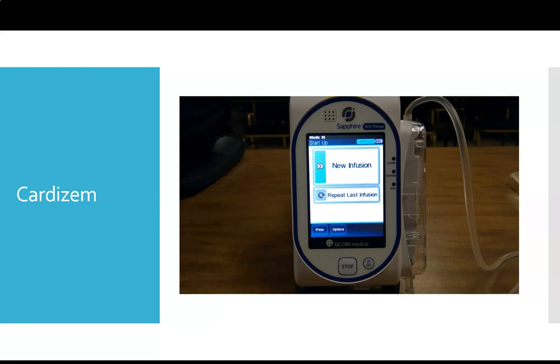Alright, the next medication we're going to look at on the pump is Cardizem. And Cardizem is the most complex med to run through the pump, but it actually is very user-friendly once you have it set up and running. It just takes a little bit more effort on the back end. So our Cardizem that we're mixing is going to be our 100 milligrams in 100 mLs.